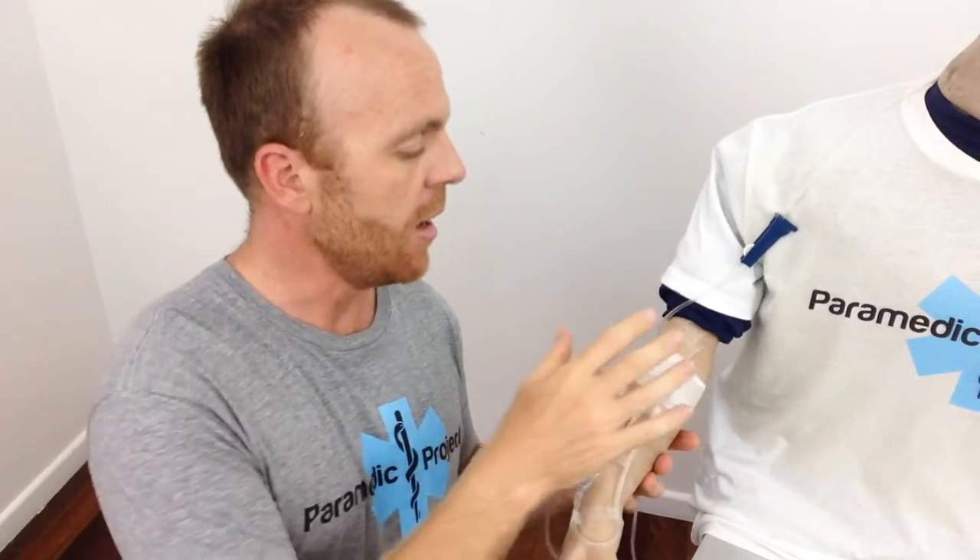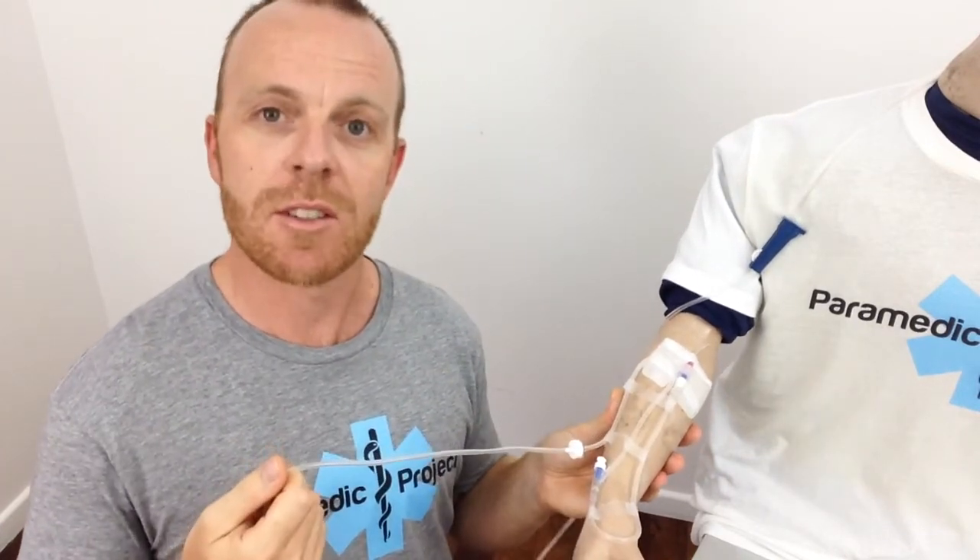So during those times, and in general, if we're not actually administering IV fluids, just don't have this hose attached at all. The most important thing is that we've got patent IV access and that it is well protected. And the best way for it to be protected is for this hose not to be attached.